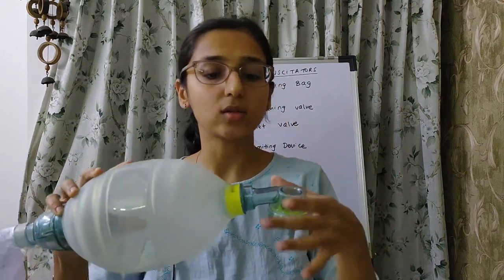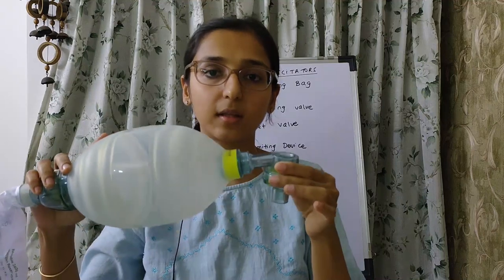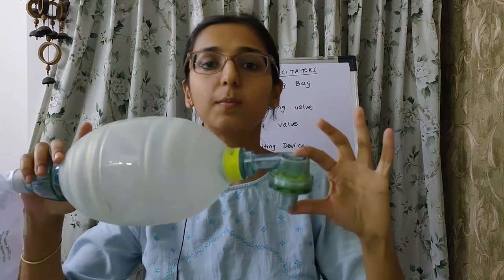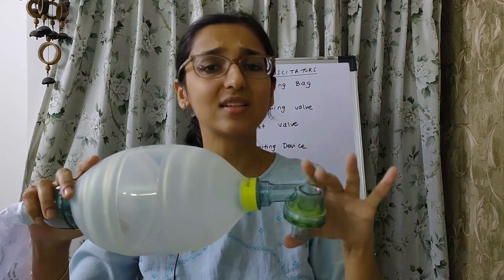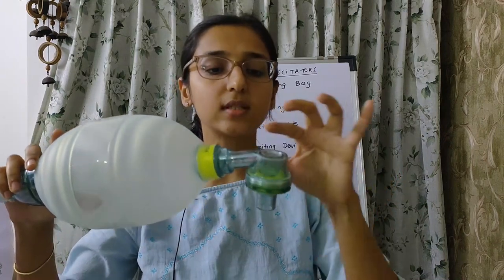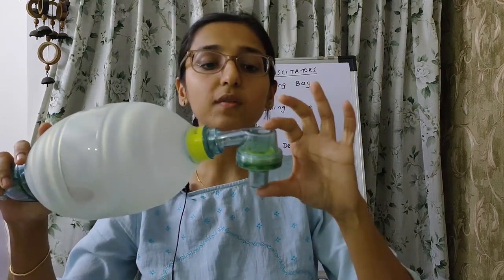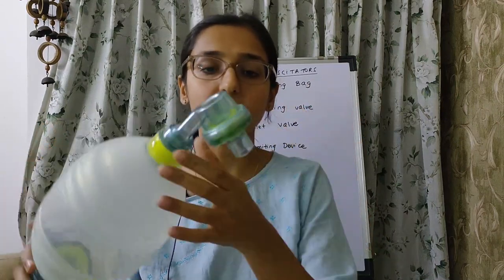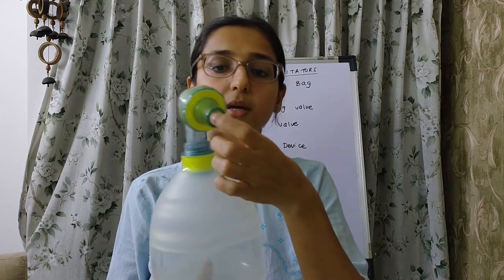There are two ends — the patient end and the respirable gas inlet end. The patient end has a T-shaped housing which is transparent, so you can see if there are any secretions or blood collection inside. This T-shaped housing is 7 ml in capacity. This is the patient port.